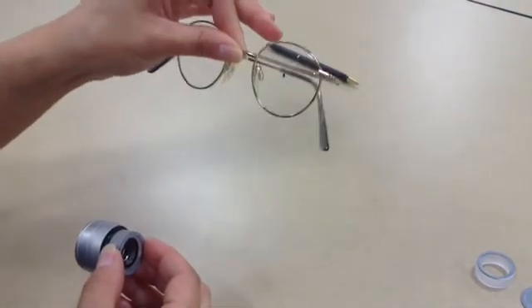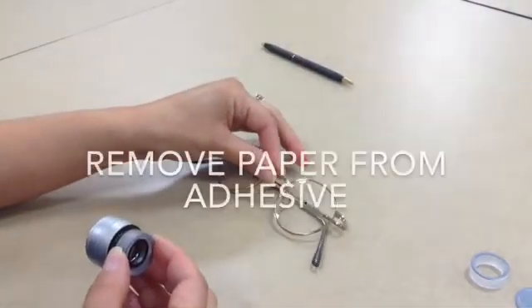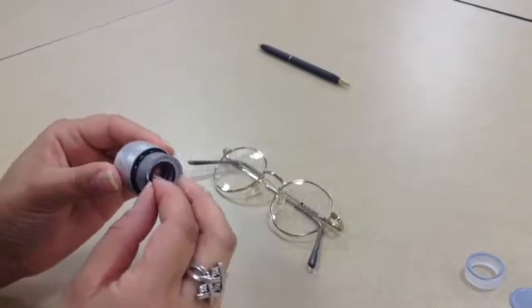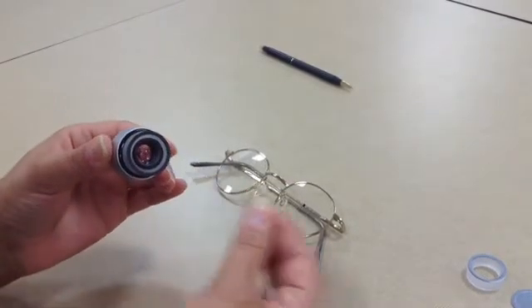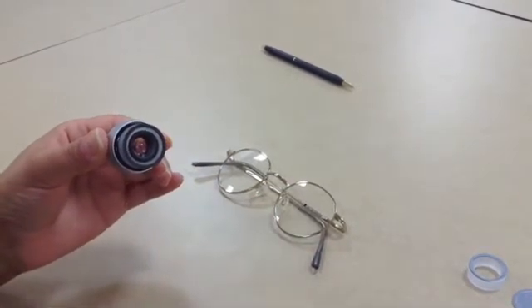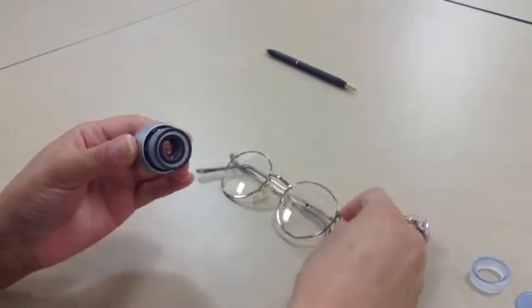Then what you do is you'll take off the protective piece of paper that is over the adhesive on the Telescope Mounting Adapter, and then you'll make sure to center that telescope right over that mark on the front of the lens. And then press down firmly.